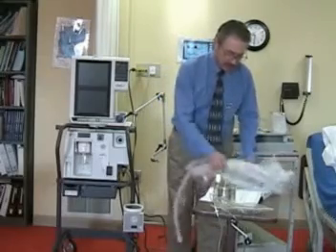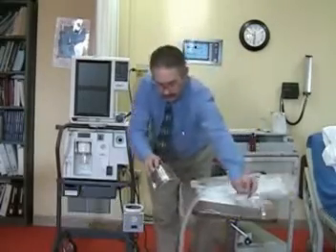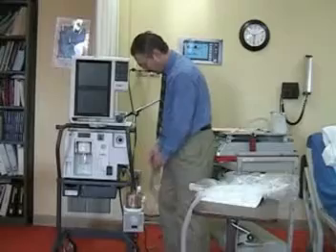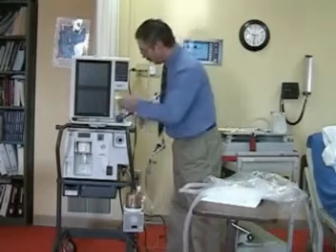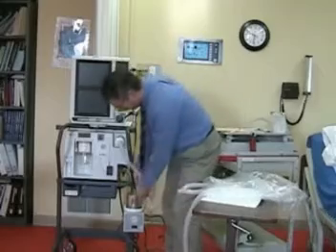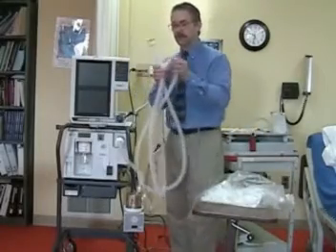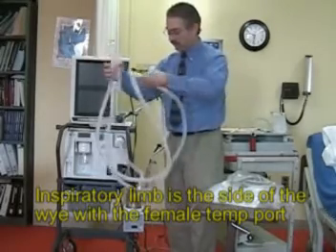So next you'll set up the equipment. Make sure that you have your humidifier and water feed system. Connect that to the humidifier and attach your water bag. Your tubing from the ventilator to the humidifier includes a filter, and then the ventilator tubing itself, making sure that you set the thermometer port on the inspiratory tubing.